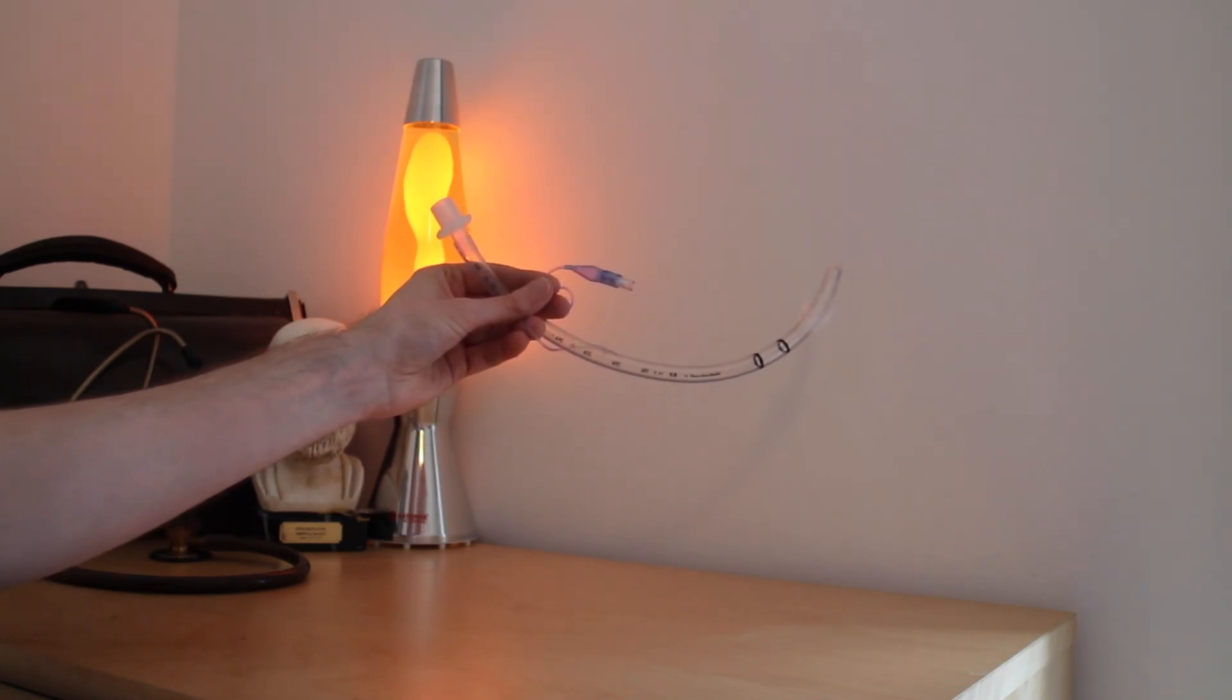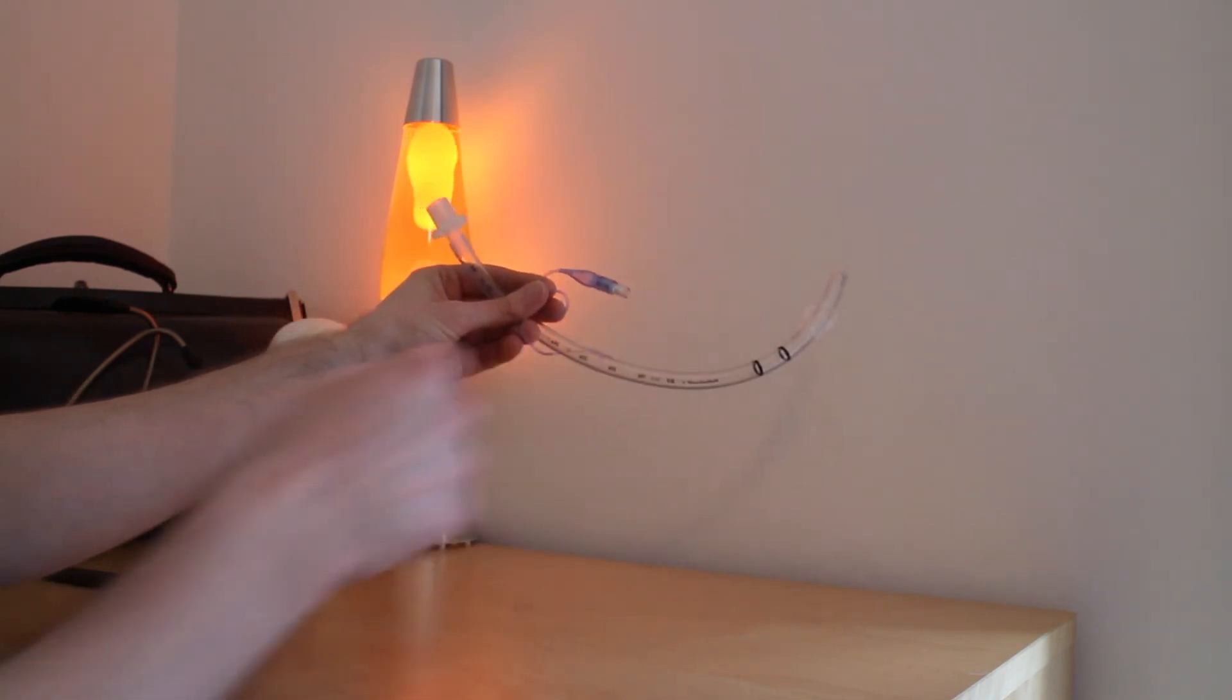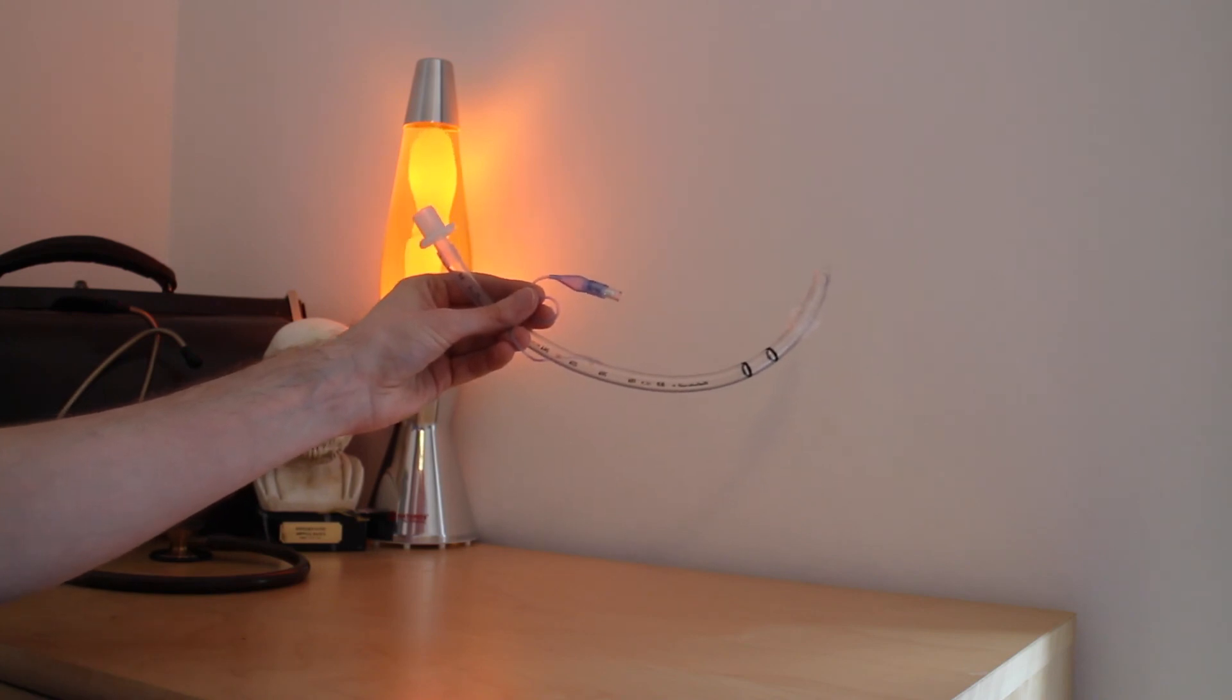I have seen this tube used in emergency situations and in elective situations in the operating theatre. It is commonly used by anaesthetists to provide a definitive airway in patients who require oxygenation and ventilation during a general anaesthetic.